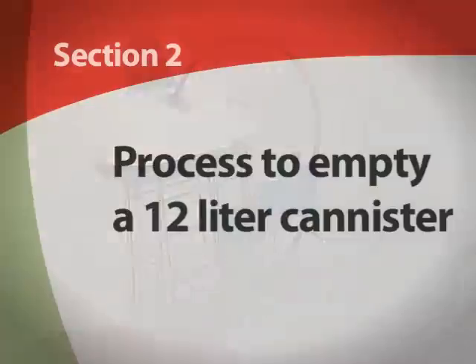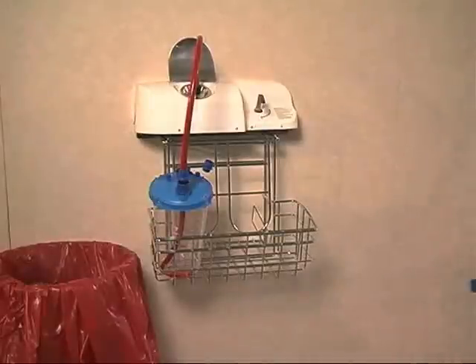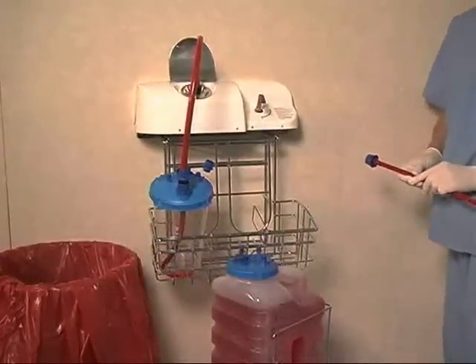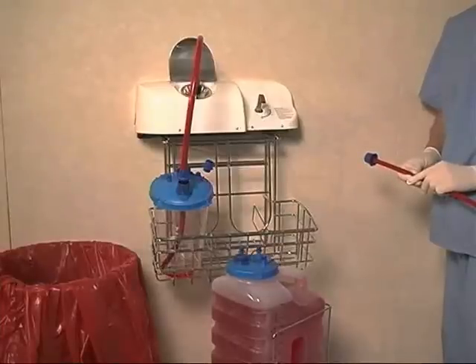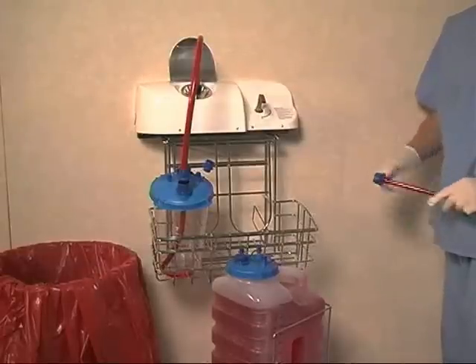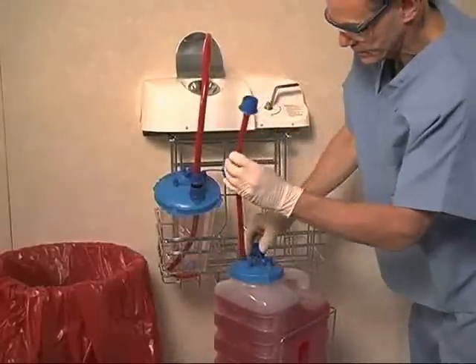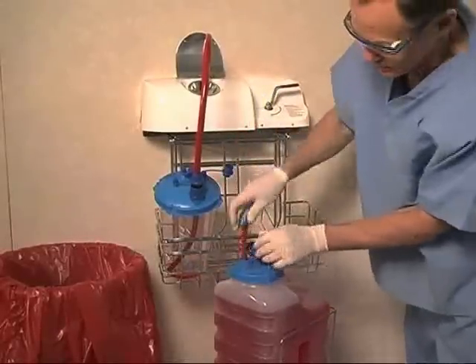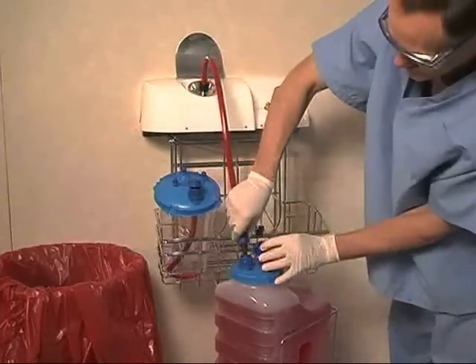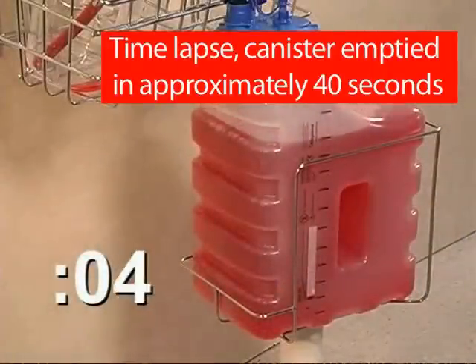The pump system is then turned off. For our next example, we are using a canister that collects large volumes of fluid. In this case, we will position the canister on the roll stand adjacent to the device. The pump tube remains attached to the previously emptied canister to limit exposure to bodily fluids. We activate the device by turning the handle from the off to the on position. We open the cap on the accessory port and insert the dip tube into the canister full of infectious liquid medical waste. Next, we attach the pump tube to facilitate the connection between the canister and the device. The pump evacuates approximately one liter of fluid every four seconds.